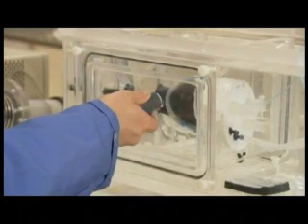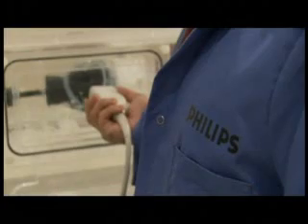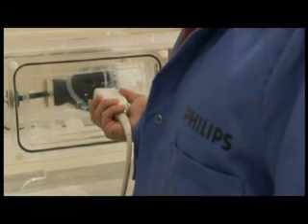In all of these imaging modes, it is clear that the appearance of the phantom material resembles the intensity and speckle pattern expected of biological tissue, and that the range of dynamic behavior also approximates that of the beating heart. We have used these capabilities to validate new algorithms for segmentation, for registration of multiple volumetric acquisitions, and for tracking of tissue motion within the phantom walls. The reproducibility and multimodal nature of our phantom allows us to compare ultrasound-derived results with reference measurements from sonometry, cardiac CT, and magnetic resonance imaging.